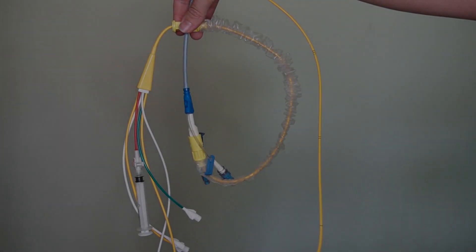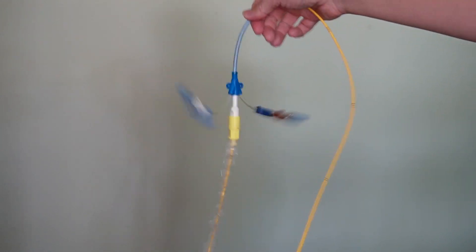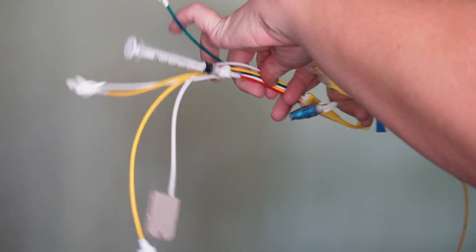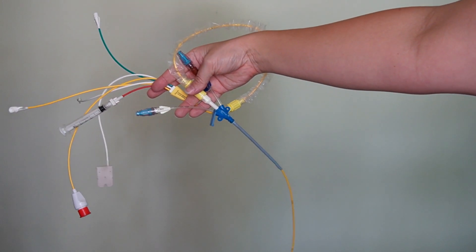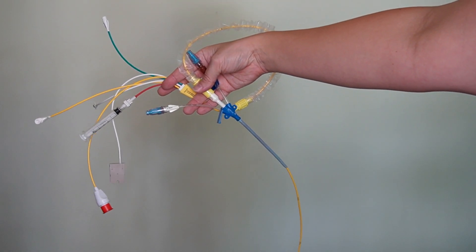So let's talk about the anatomy of PA catheters. This is what a pulmonary artery catheter looks like outside of the body and while it is inserted into a MAC introducer. You can see all the components right here.